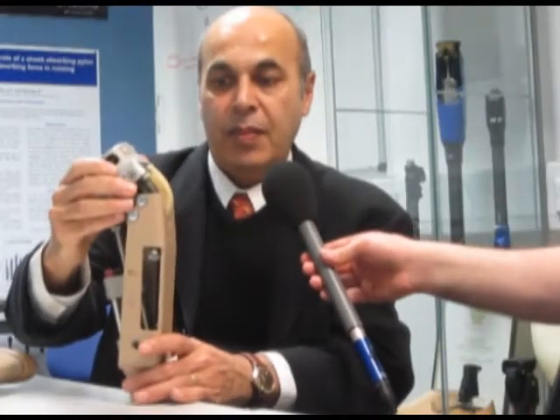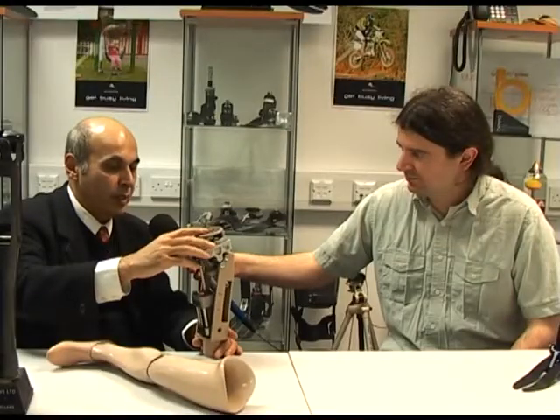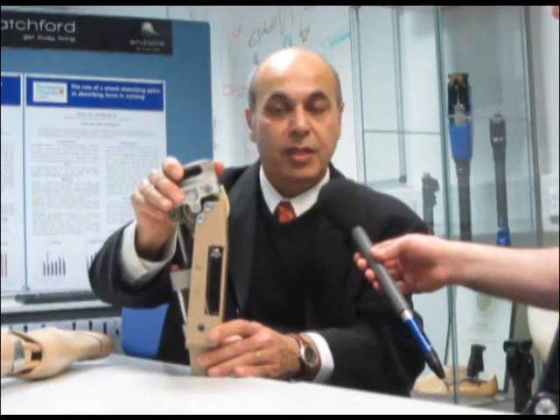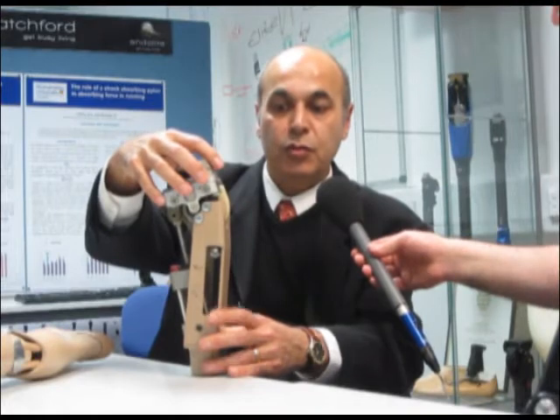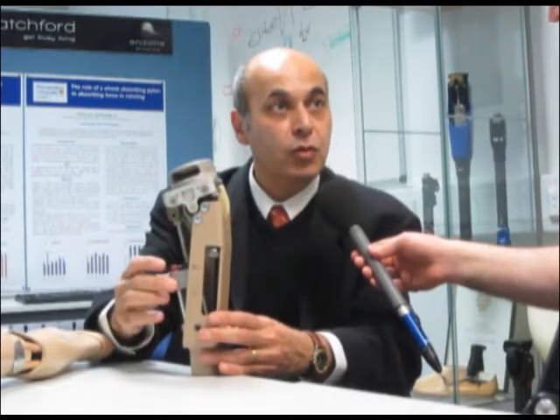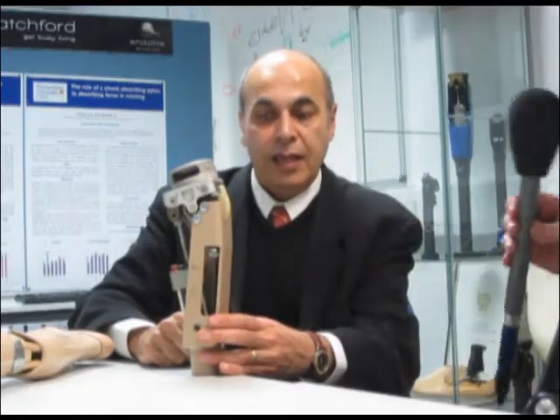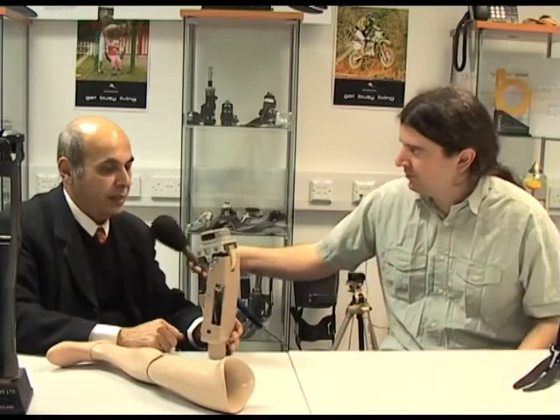This is the first modular limb prosthesis — the modular assembly prosthesis called the MAP system — which was the first application of engineering into prosthetics. It has an above-knee unit with a knee control for the swing control of the knee's activities. This means you can control how fast the leg swings forward and thus make the gait more natural. Exactly.